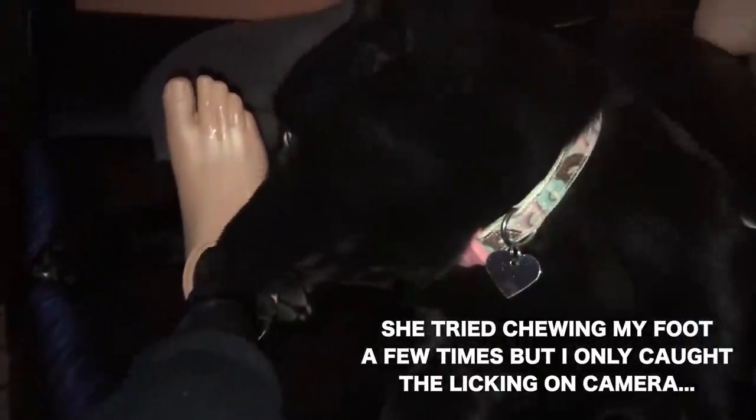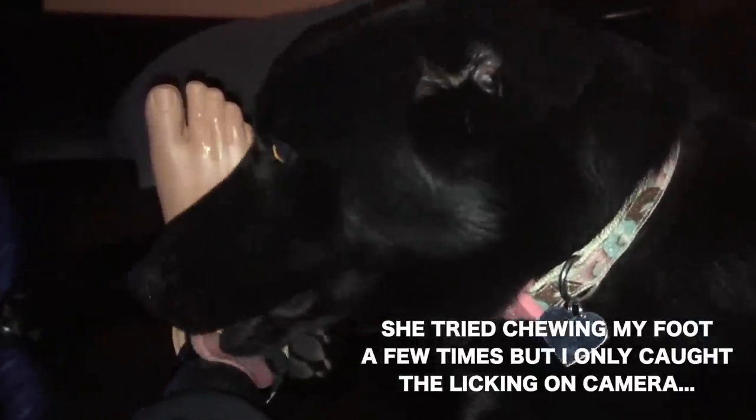We almost made it to the end of the day. I was able to wear it until about eight o'clock, when it really activated my phantom pain and phantom sensation and felt really weird, so I took it off and chilled on the couch. Before that though, my friend's puppy dog decided to gnaw on the toes, which I thought was pretty adorable. All in all, I'd say this is a very successful leg day.